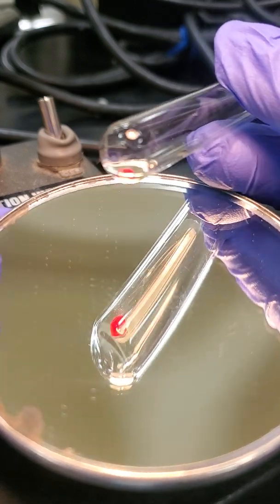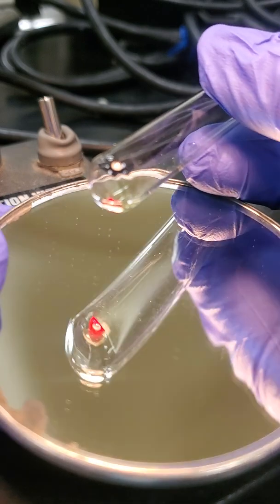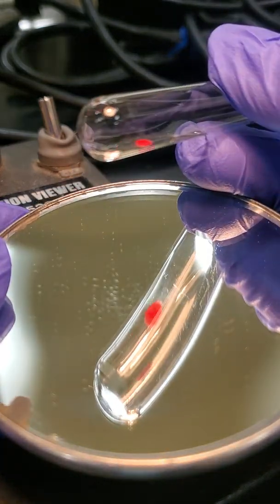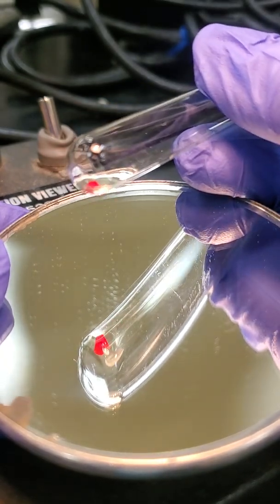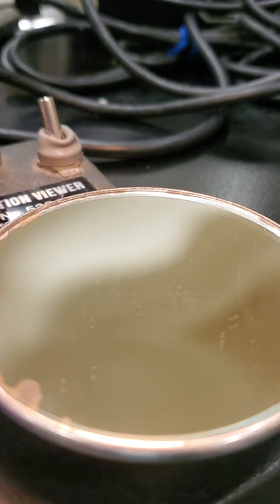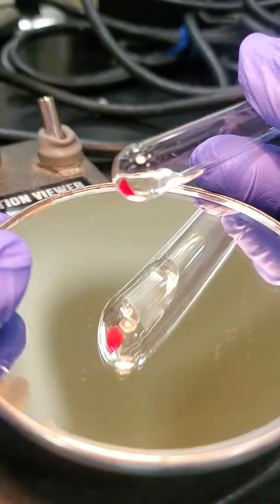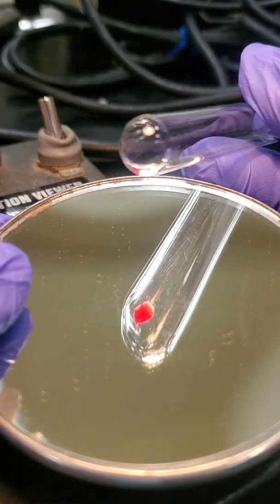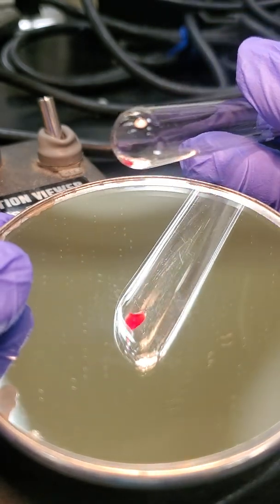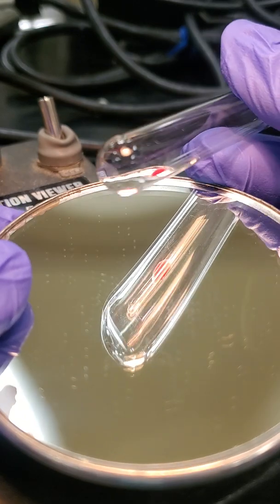So that is what we would call a 4+ reaction. I know there's kind of a glare. That's a 4+. One big solid chunk, no little agglutinates at all. Okay, this is unknown number 1, our D tube. Same thing as our B tube. That's another 4+ reaction there.